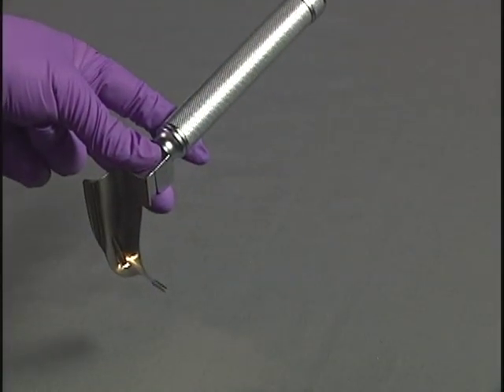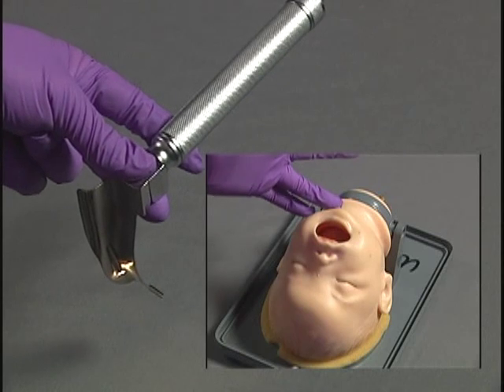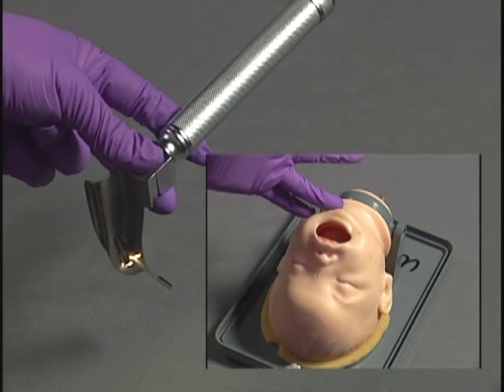When using the laryngoscope and McGill forceps on pediatric or infant patients, use the same steps as an adult with some slight modifications. Hold the handle with the thumb, index, and middle fingers. On the infant, support the chin with the ring and little fingers of the left hand for leverage.